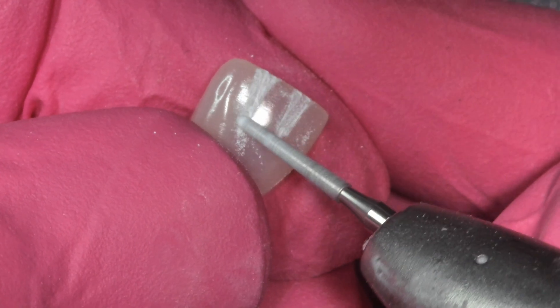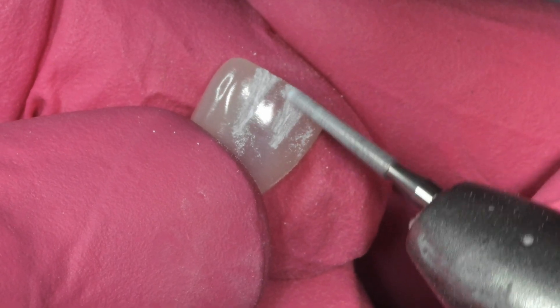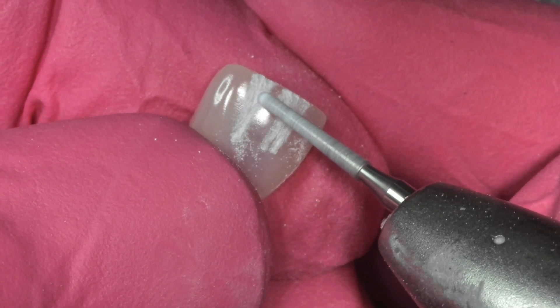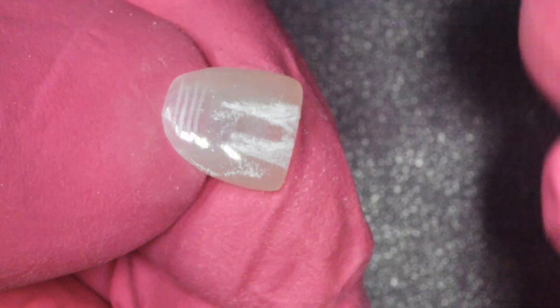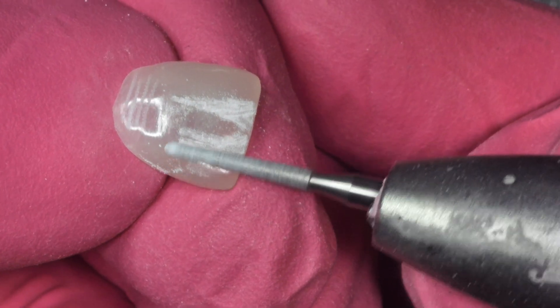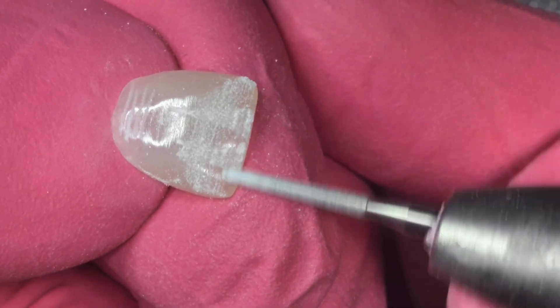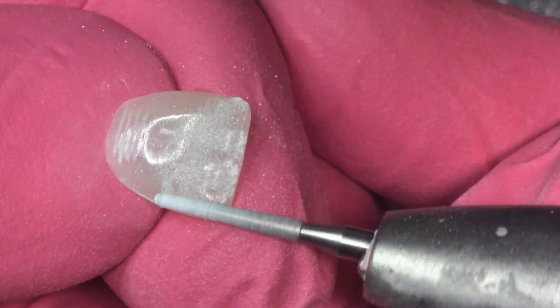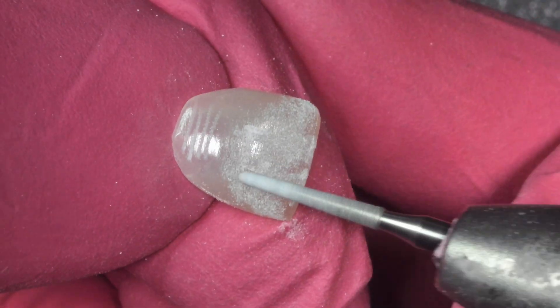In addition to that, what I find is that when I've tried this in the past with all the print resins that I've evaluated, when you then go to hand polish it, getting it shiny is nearly impossible in the depressions. Furthermore, the materials you'd use to polish it will basically destroy any surface texture and microtexturing that you did. So it kind of was pointless.